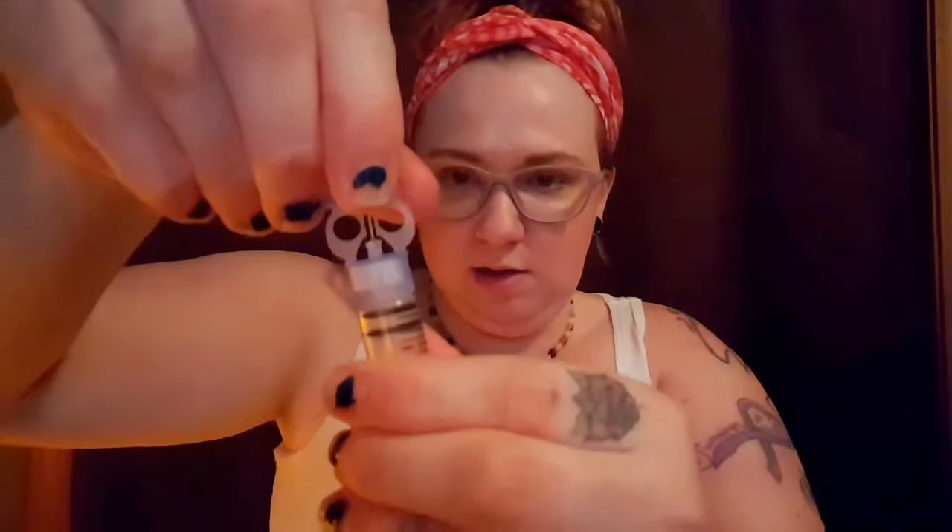The biggest difference is the plunger doesn't have an extra piece — this whole thing goes into the pump, which is kind of cool. And there's no capped needle; you basically just stick the vial upside down on top of there. Which is kind of neat because you won't have to hold the insulin vial and draw up insulin into the cartridge — it just kind of hangs out there. Then this comes off — it twists off — and this is kind of sealed, much like an insulin vial would be. It's an airtight seal. So if you want to pre-fill cartridges for vacation or a day trip, you don't have to worry about insulin leaking out of your cartridge. I really like that.